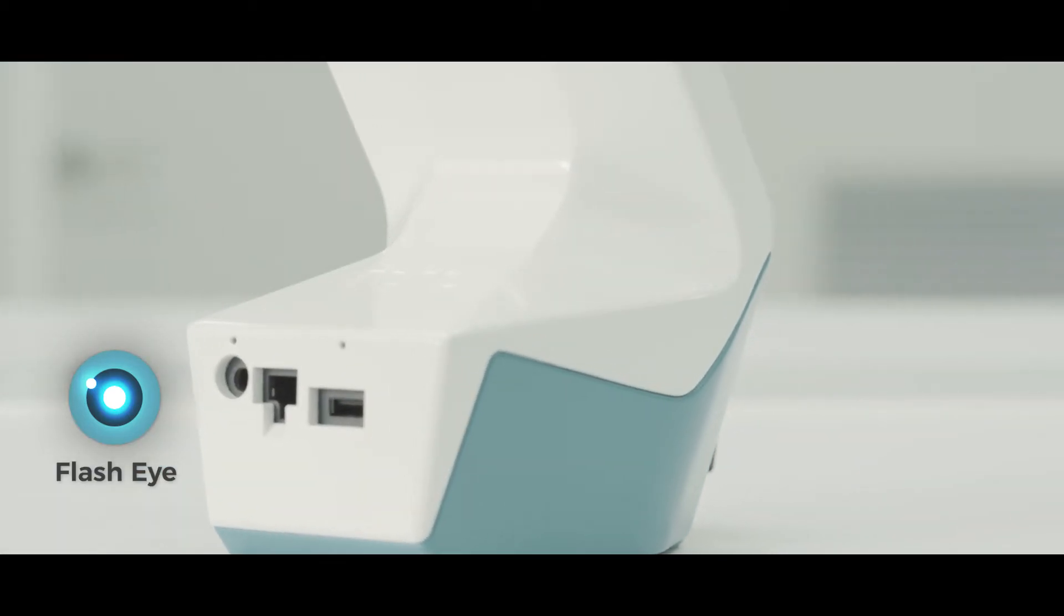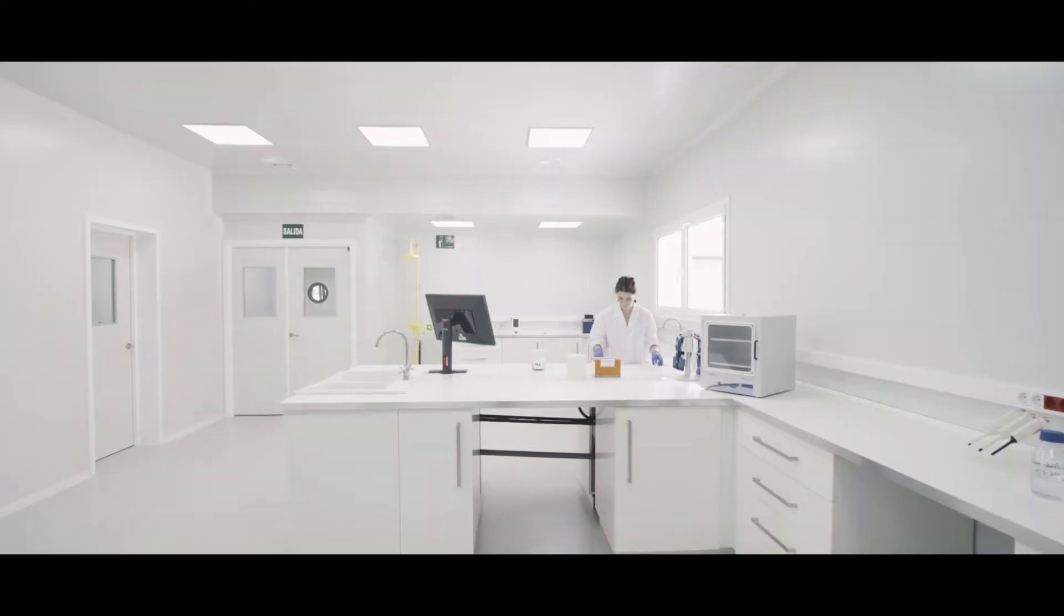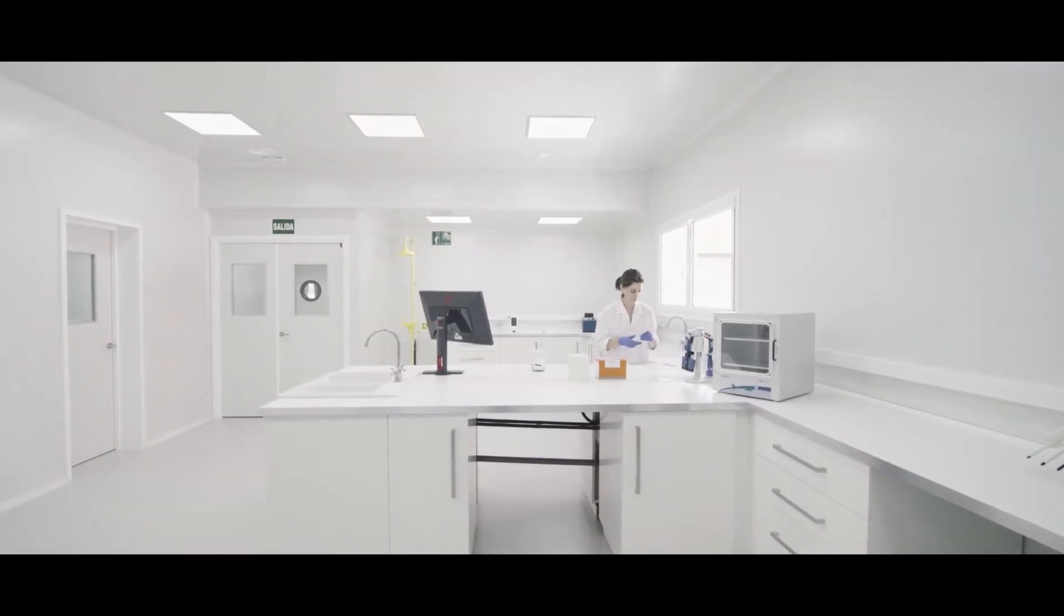Equipped with the exclusive FlashEye technology, iPeak brings the sensitivity of your lateral flow assay to the next level.